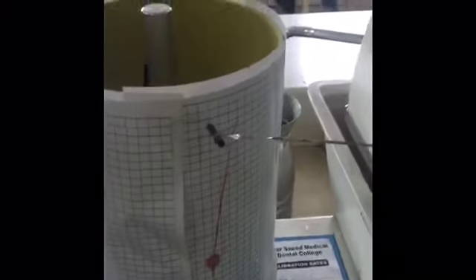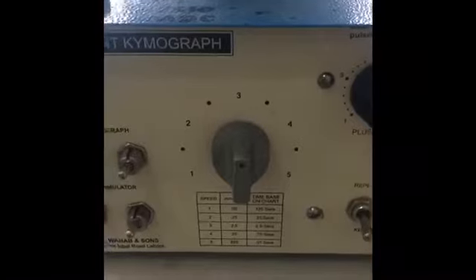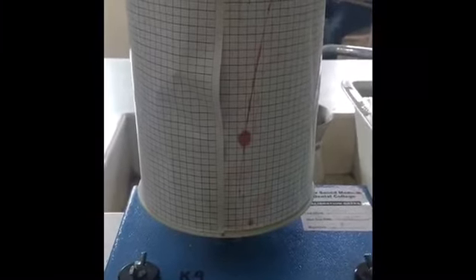This pointer moves when the drum moves. This is the drum. This is called the kymograph. The speed of the kymograph should be set at number three, and this is the on/off button of the spirogram. This is called the revolving drum, and over this revolving drum we have a graph paper. On the right side we have a rubber tubing, and this rubber tubing contains a mouthpiece, which is inserted into the mouth of the subject.